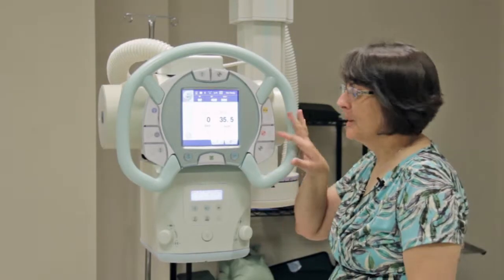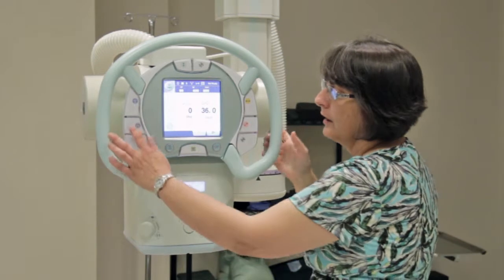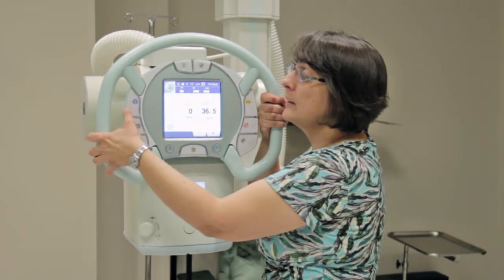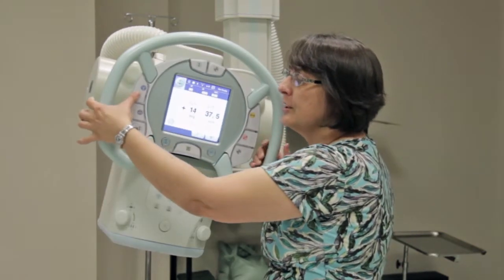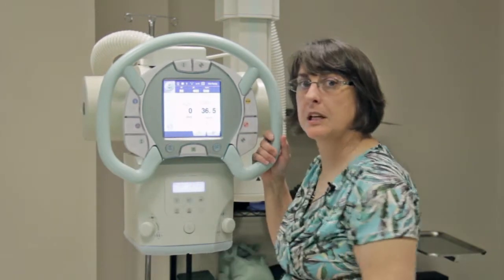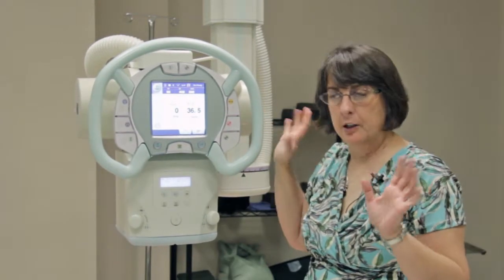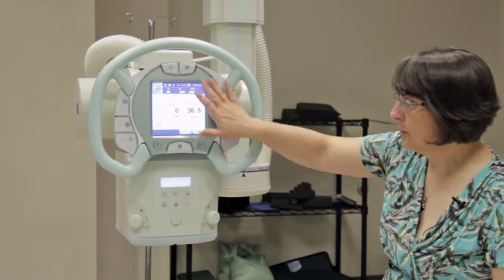Now we're going to go over the tube head. You have an all-locks release here as well as up here. This is your vertical lock, this is your rotate-round-axis lock, and this one is your cranial-caudal. One quick note on the cranial-caudal: if you put pressure on the handles first and then try to unlock it, it will not turn. You need to press it first, then make your turn. If you find you've managed to lock it, you need to go in the opposite direction from the one you locked it in to unlock it — this is a very common problem. The rest of the locks are not quite as sensitive, but if they don't move, let go, release the lock again before you put pressure on the overhead.